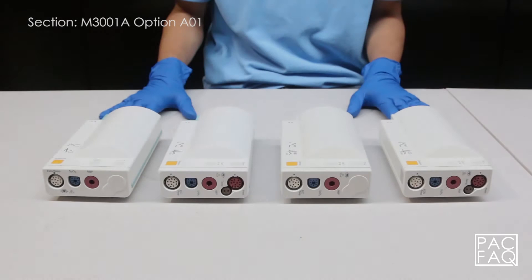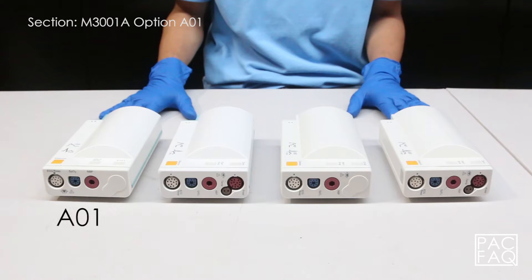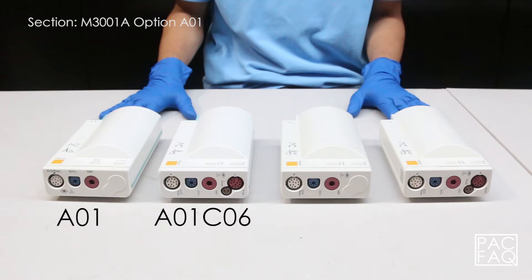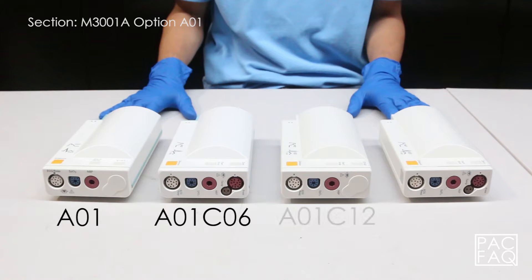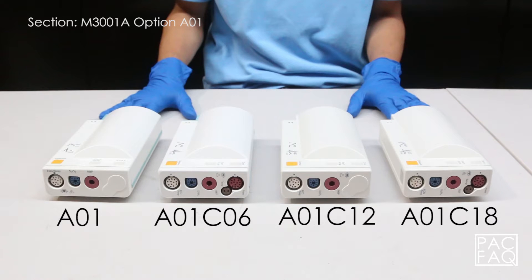In section M3001A module option A01, we will talk about the options and parameters that come with each unit. First we have A01 standard, then A01 C06, A01 C12, and A01 C18.